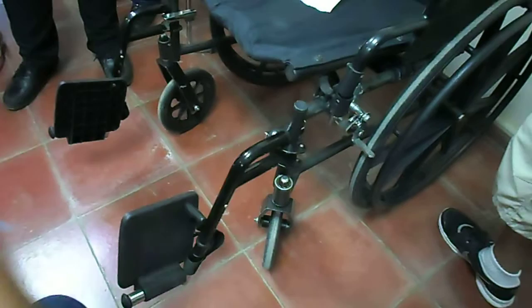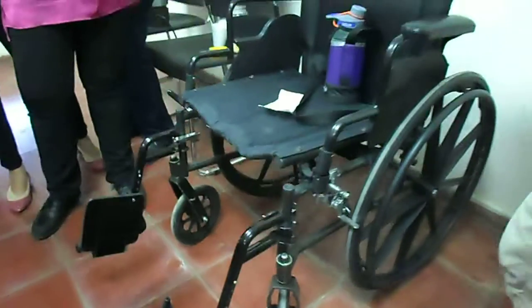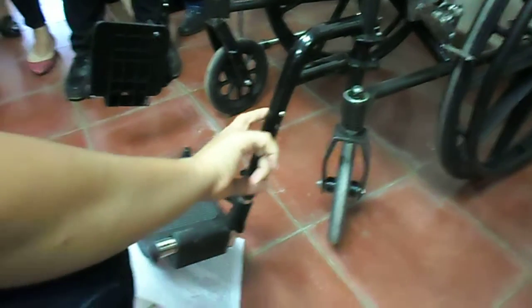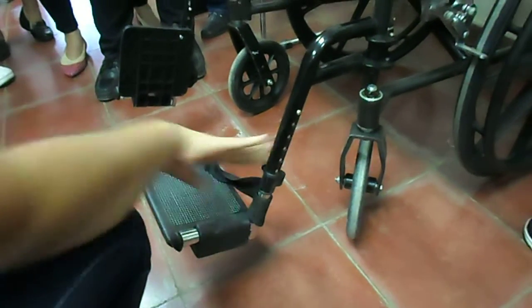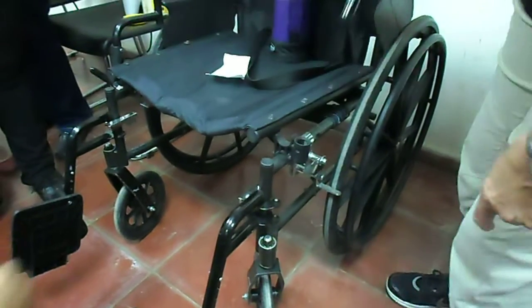This type of side can be removed. This is an example of the side that can be adjusted. This also has a very easily adjusted height of the footrest by pushing these little buttons up along these holes there. You can raise and lower the footrest height. We can also move these armrests by pushing here — again you have a little push button mechanism — and that arm will flip back.